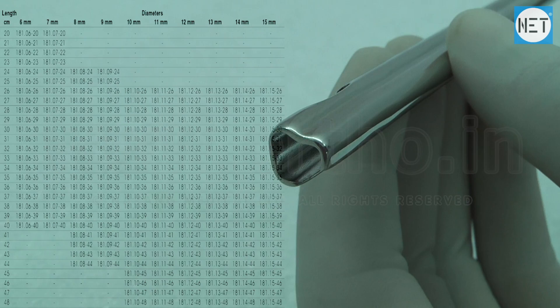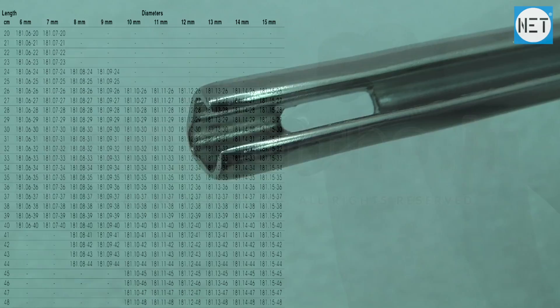These are available in lengths varying from 20 to 48 cm and are available in diameters varying from 6 mm to 15 mm.